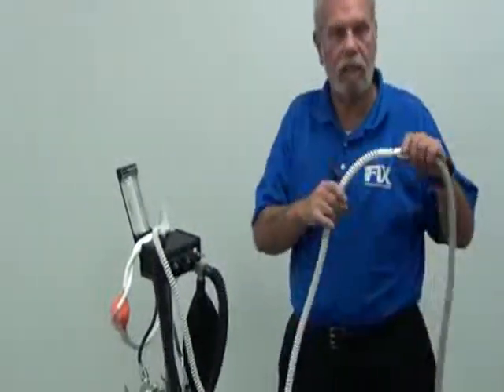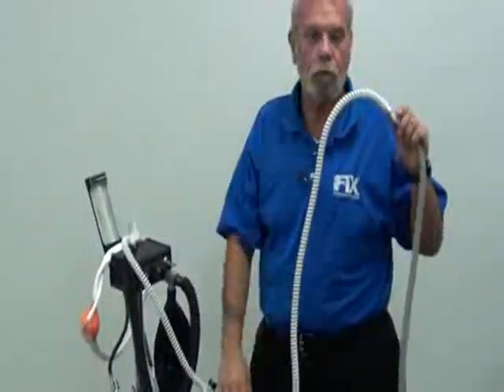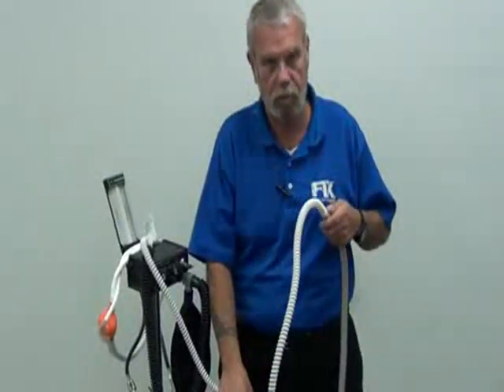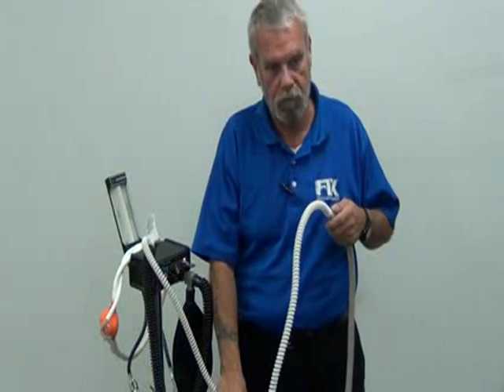Again, all this can be cleaned. There's scavenger cleaner, there's nose piece cleaner, there's a product called PICO, P-I-C-O, nose piece cleaner that can be used for this, okay?